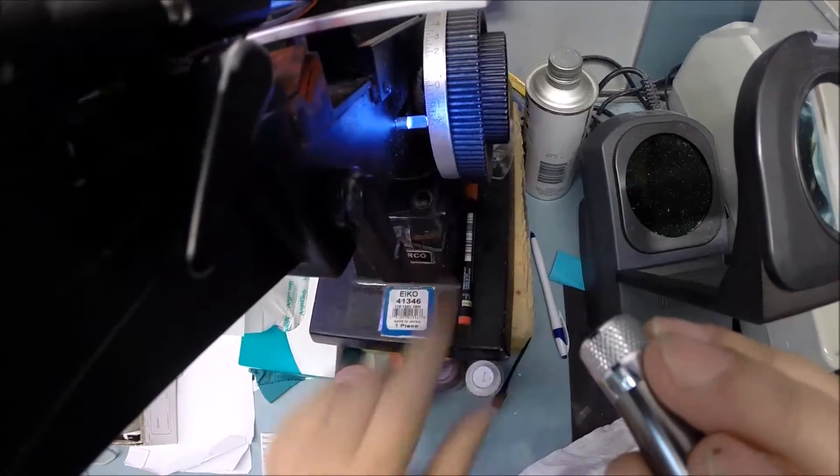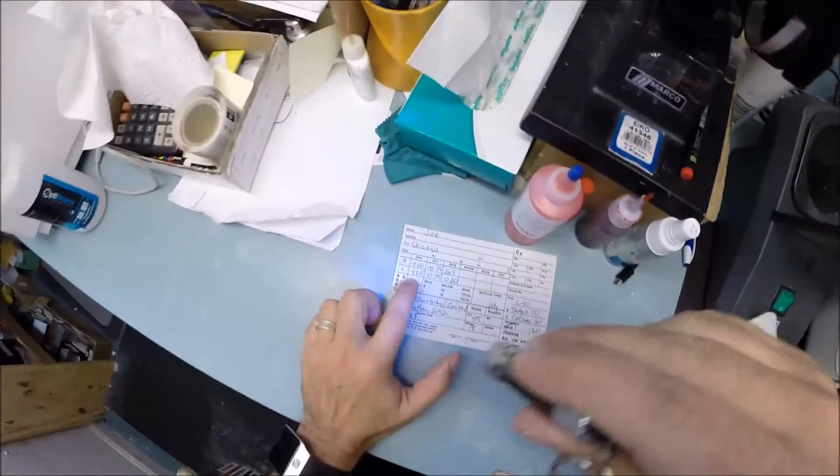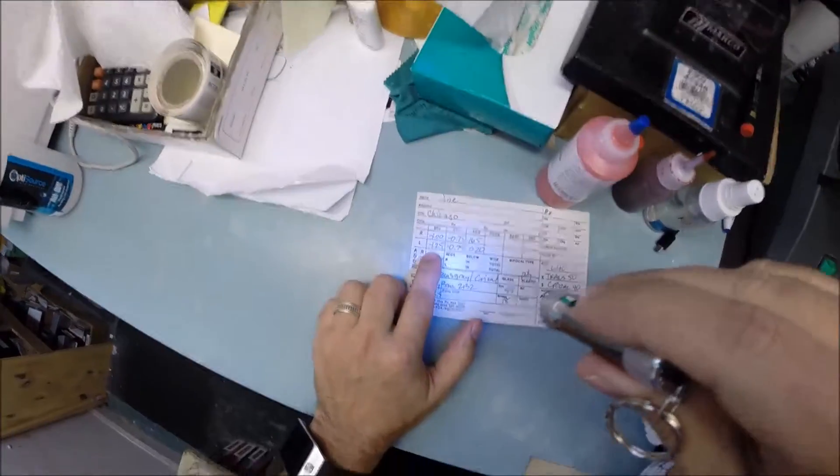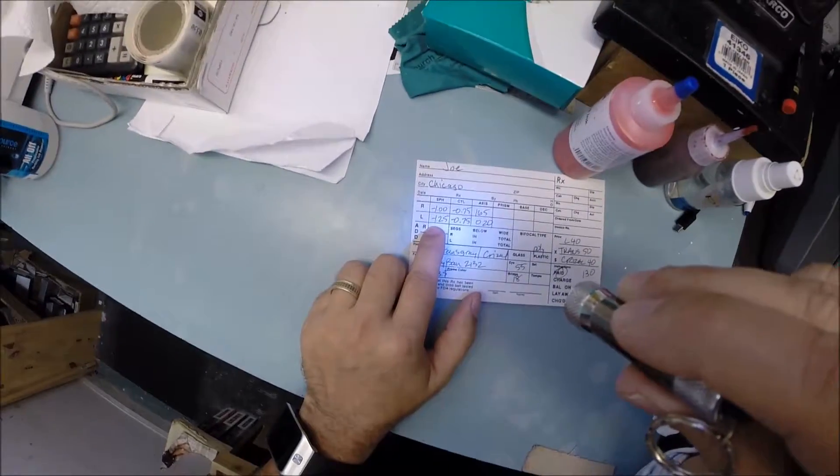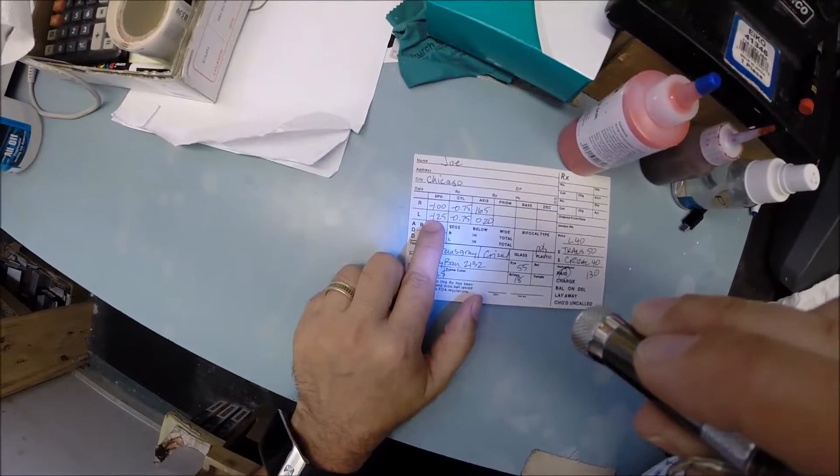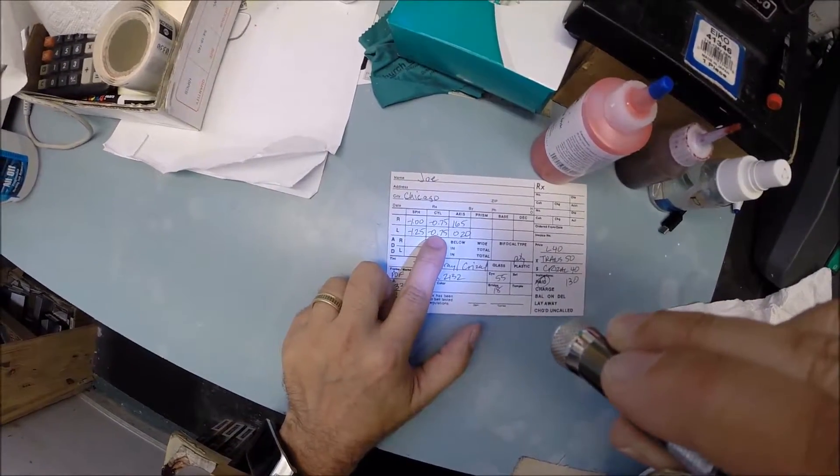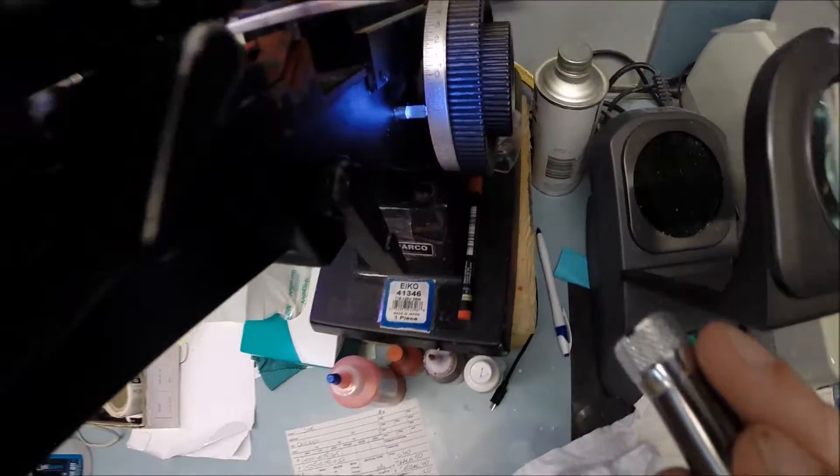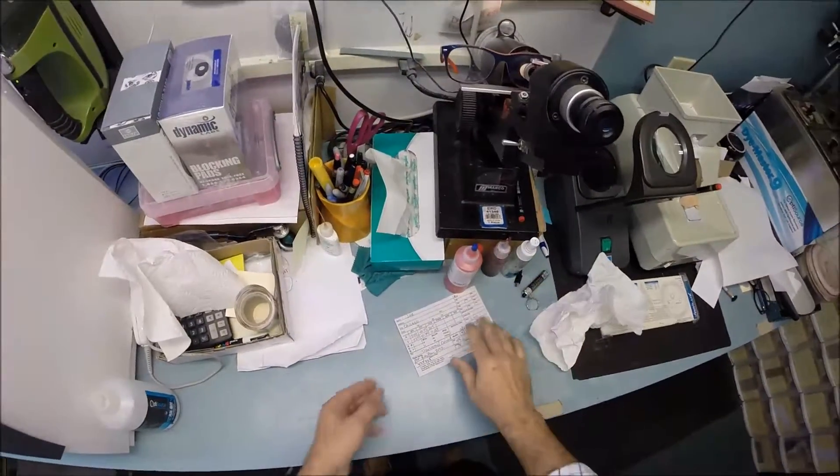I'm getting minus 1.25. We're almost at 1.50, but you have three steps of astigmatism correction, so we end up at minus 2. Do you remember high school algebra where you add two like signs together? Forget high school algebra. If someone borrowed $1.25 from you and then borrowed another 75 cents, they would owe you $2 total. We're at two diopters, so that is made correctly.